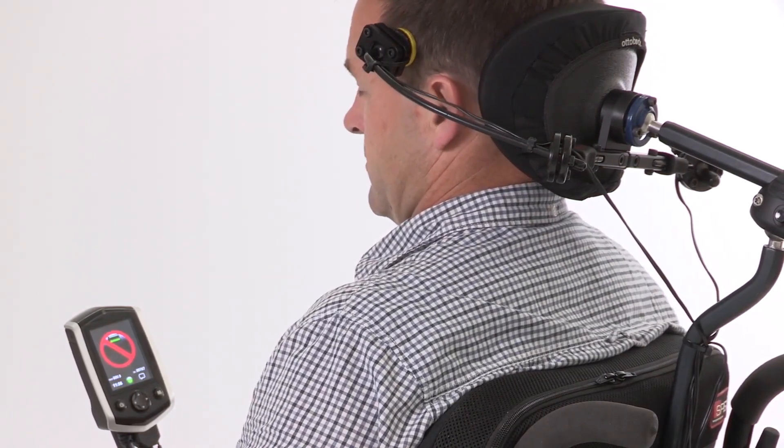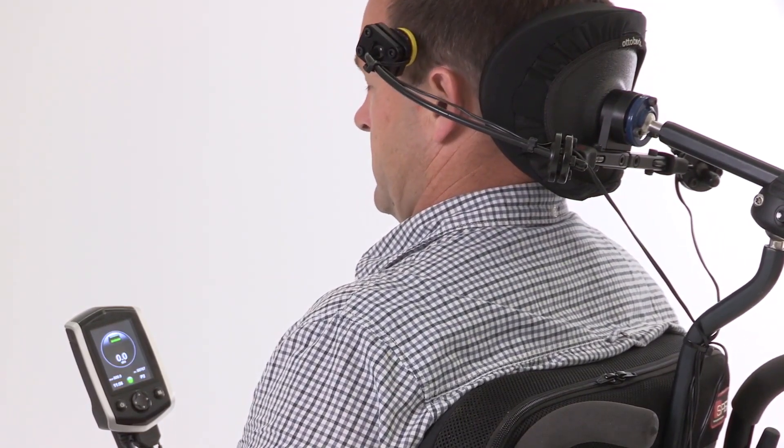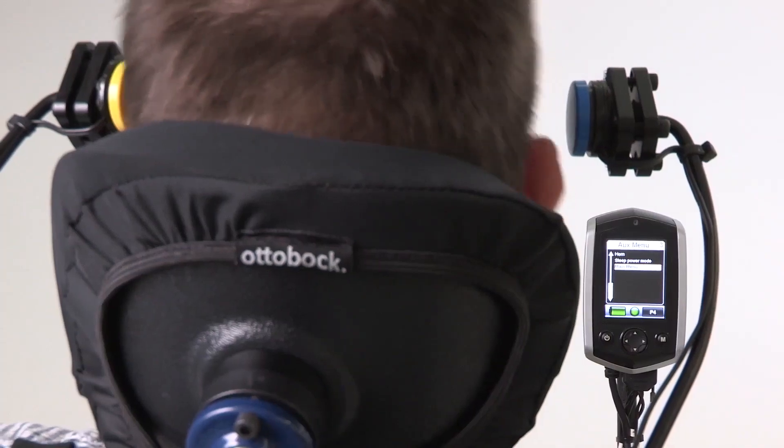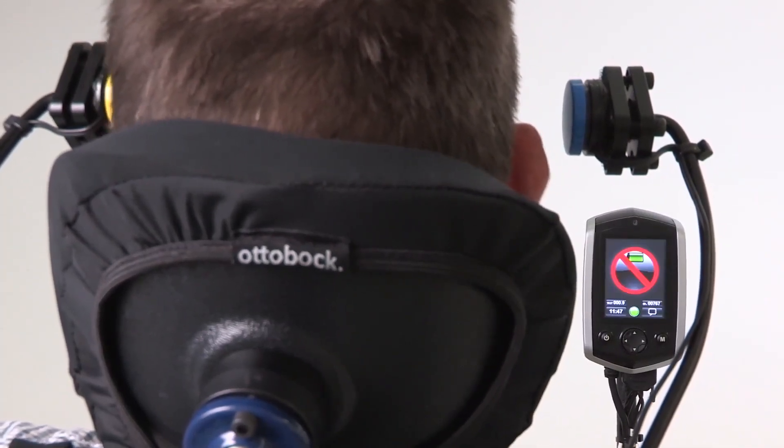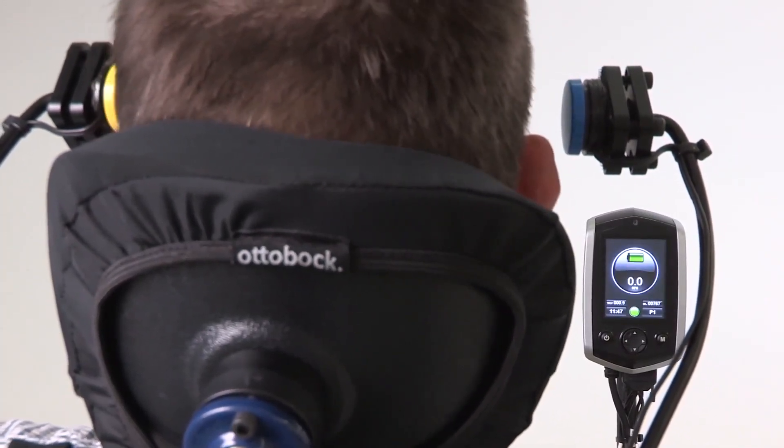Activating the right or left switch will wake the chair up from sleep mode, and cycling through profiles is done by activating the left switch twice.